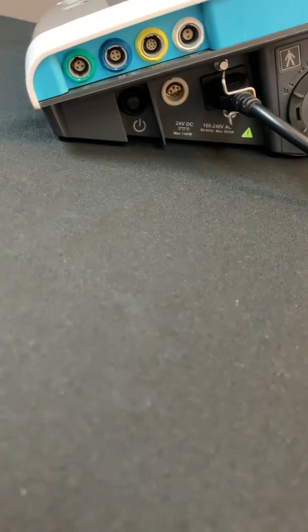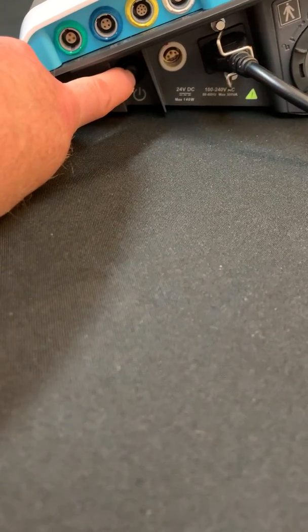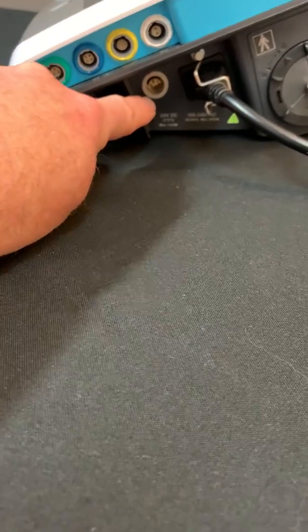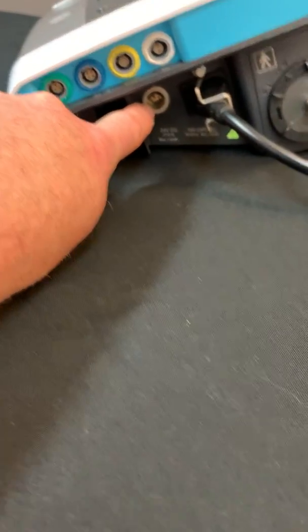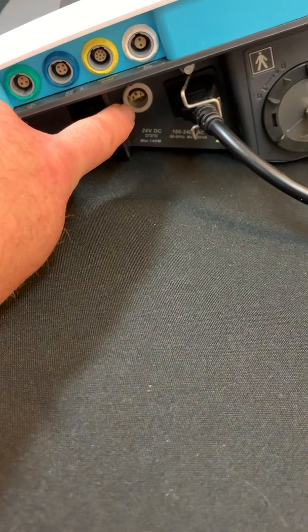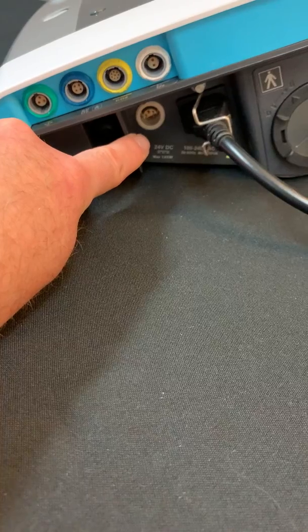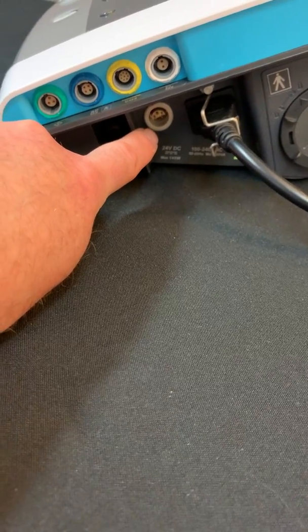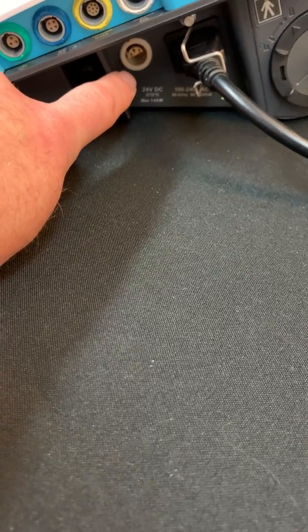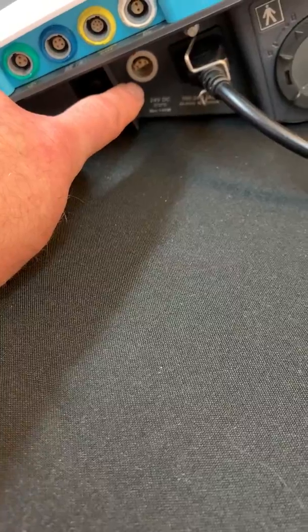What you see here is the main power switch — this button switch here — for turning the device on and off. The white connection is the DC power source. You can add additional battery life to the device. There is also an accessory that will tie into the cigarette adapter of a car so that you can travel and use the battery on your car rather than the battery on the Vivo 65 as you're traveling.